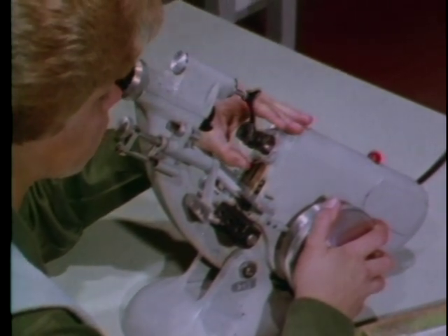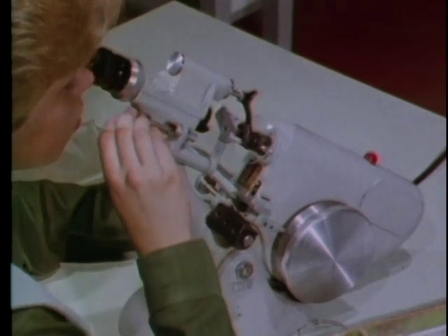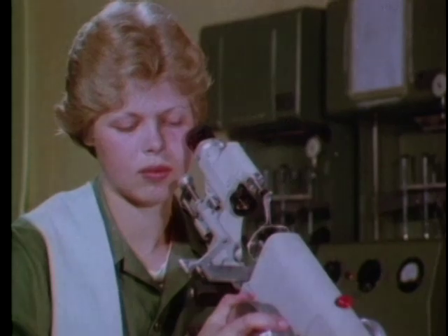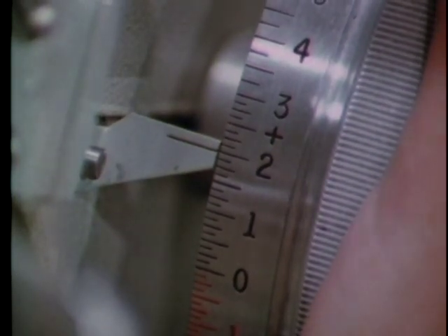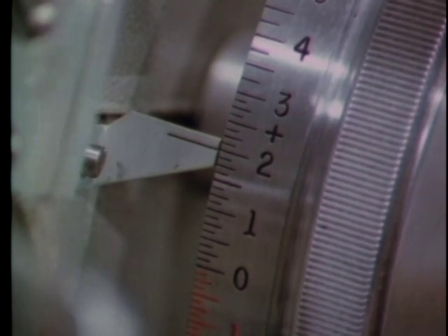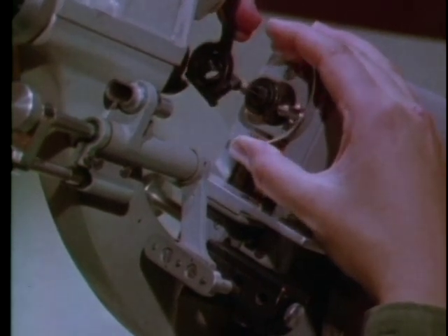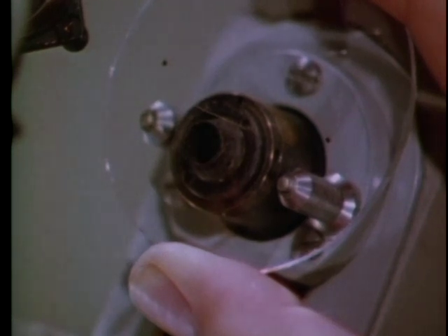After checking to see if the lens is still centered, spot the lens. Now you're ready to determine the add power. Turn the power wheel back to your first reading — the sphere power value, which is plus two. Slide the lens up so the bifocal segment, also called the add portion, is against the lens tube.